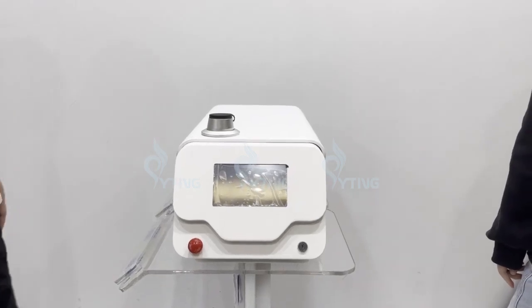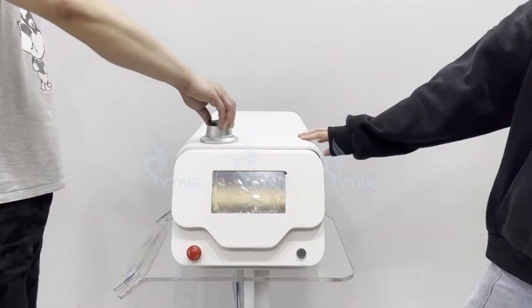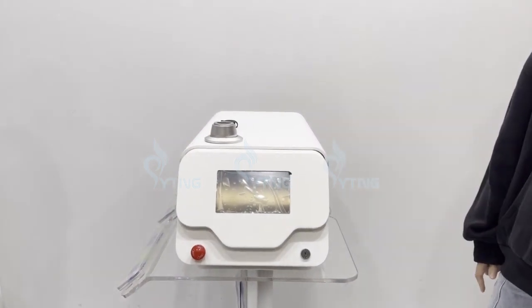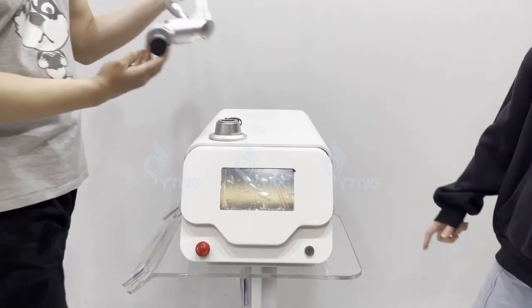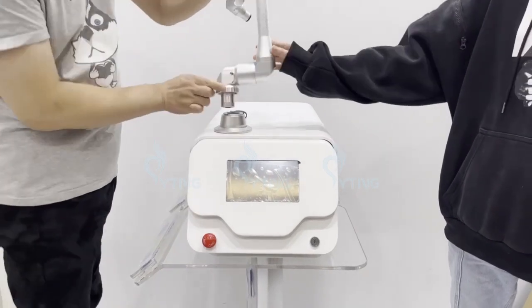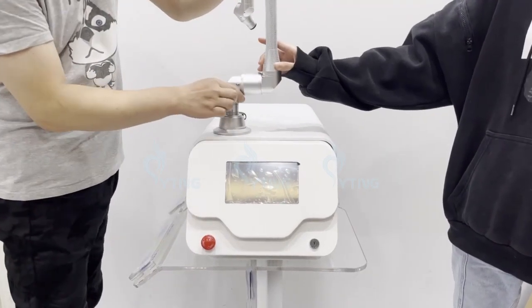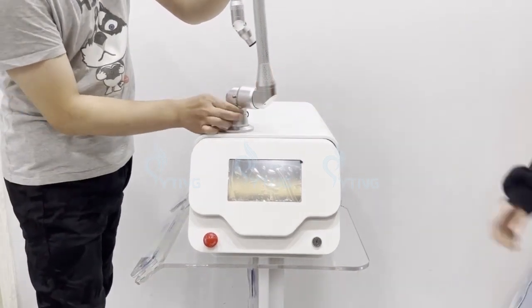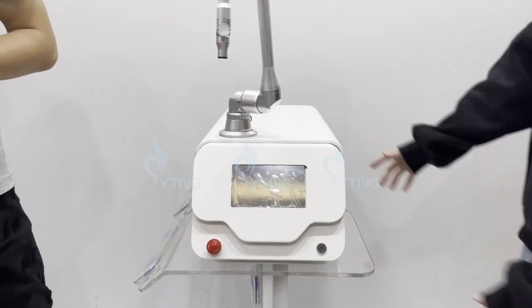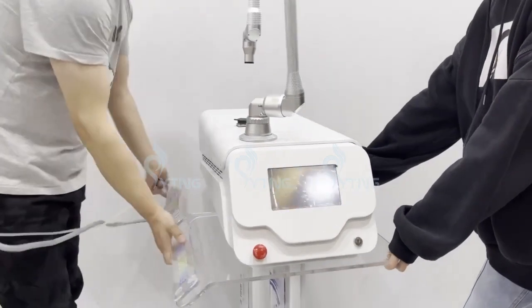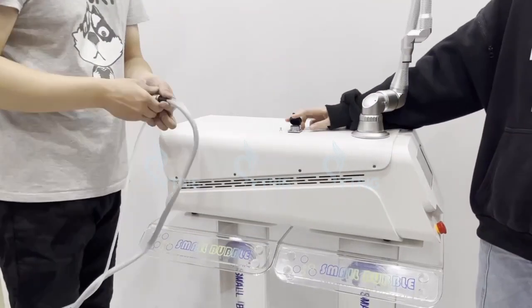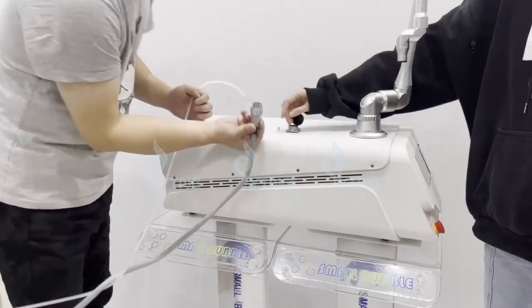Now we install this fractional laser machine. Firstly connect this part, then connect this part here.